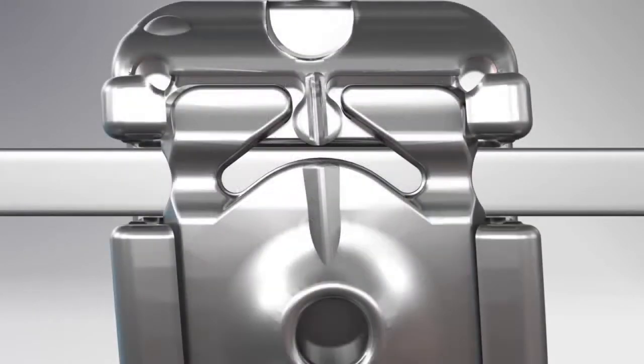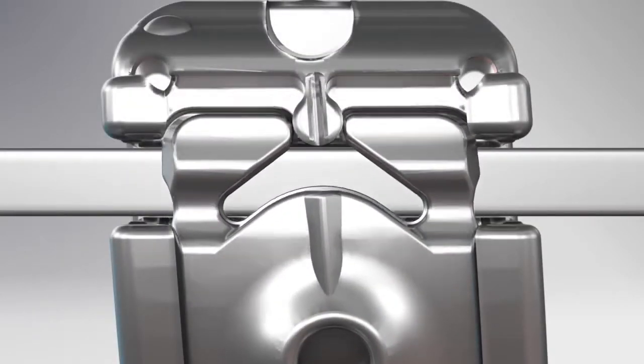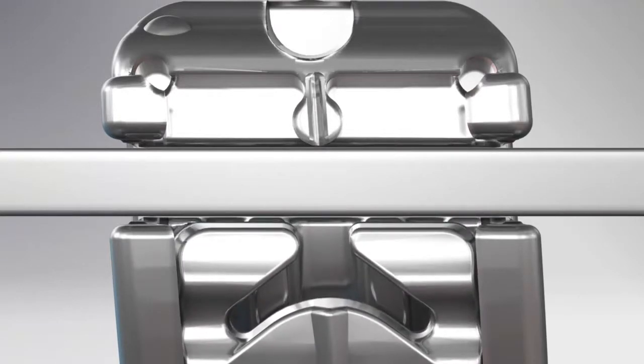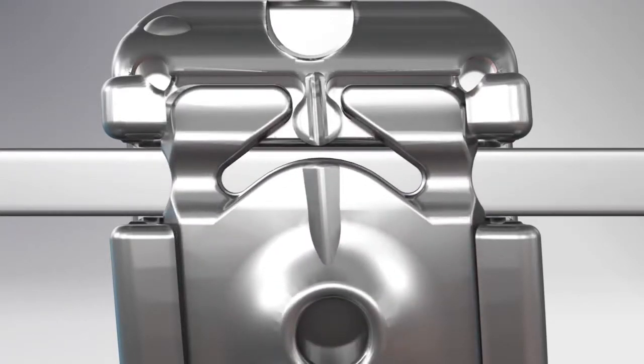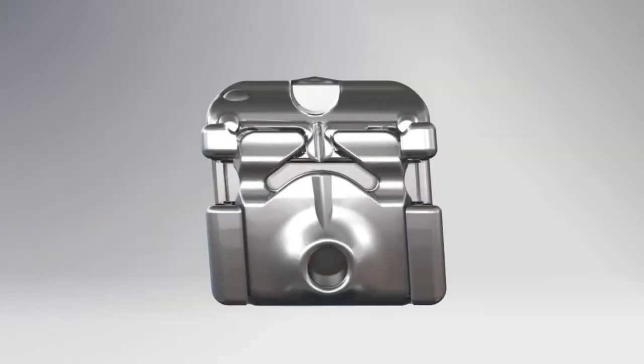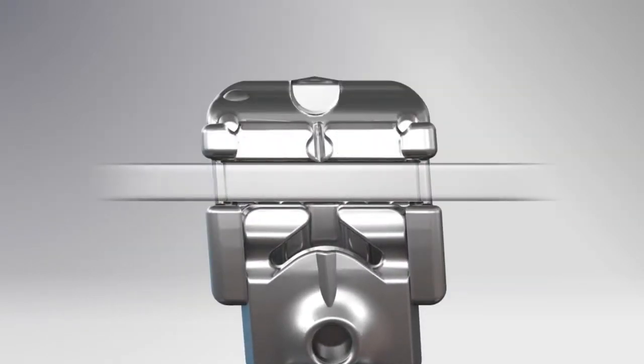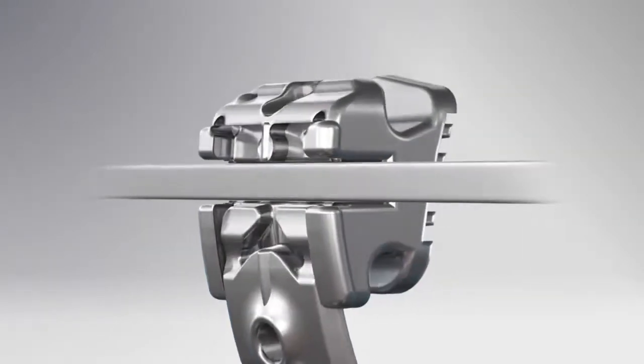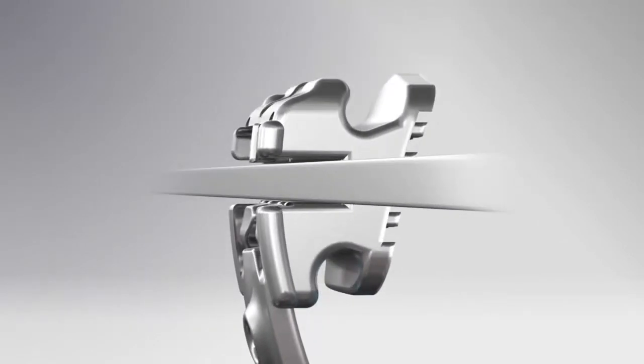The brackets are specifically designed to meet your goal of low friction and low force by providing a freedom of fit in the bracket and archwire interface. This bracket system also features an elegant and simple-to-use locking mechanism for ease of archwire application.